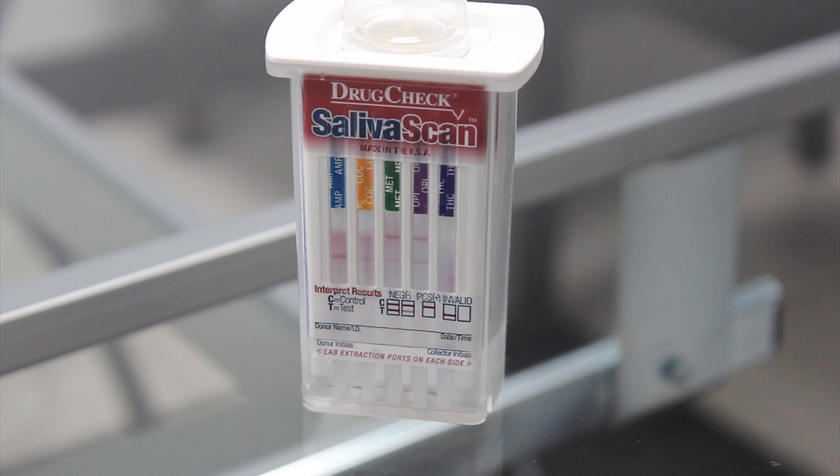The THC strip does not wick as quickly as the other strips. The THC strip is designed to wick slowly, which allows the sample and the antibody to incubate and provide the sensitivity of the THC at 50 nanograms per milliliter.